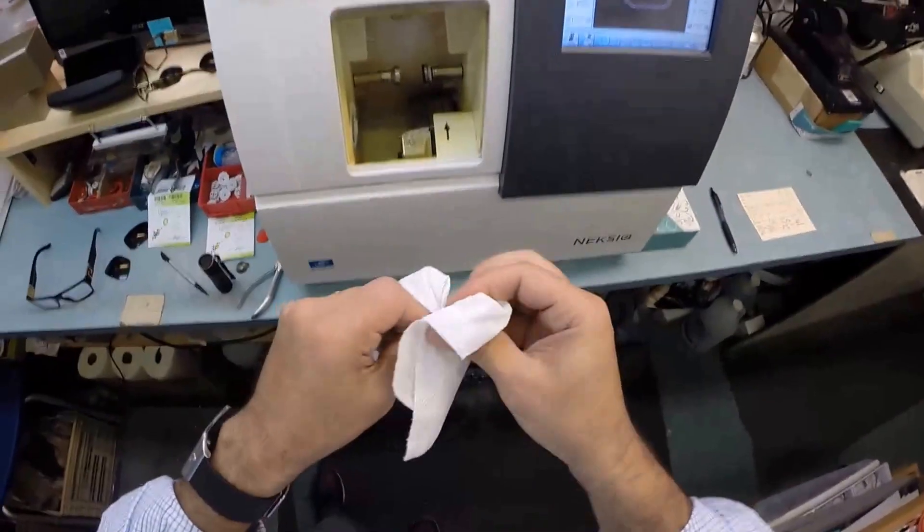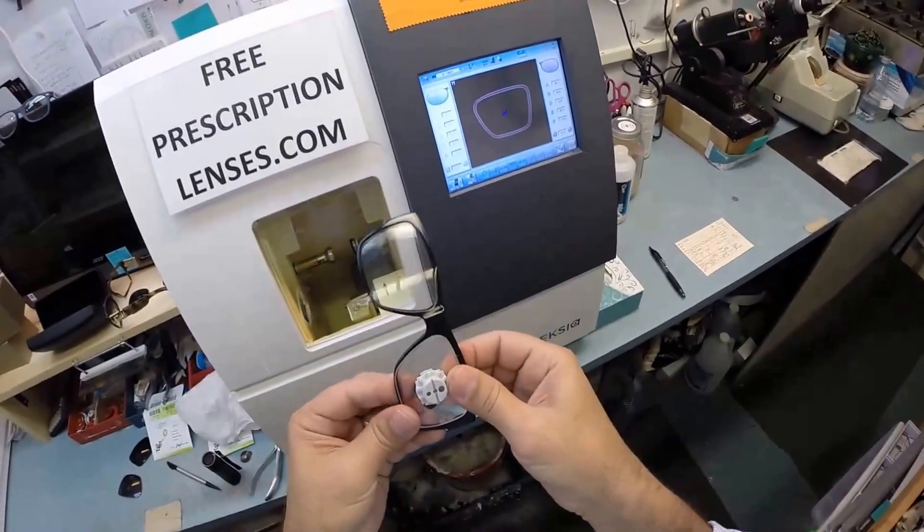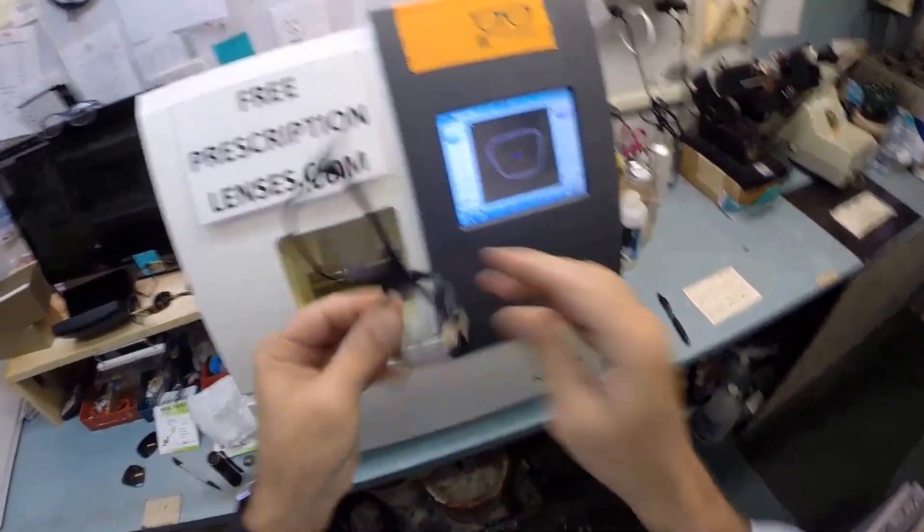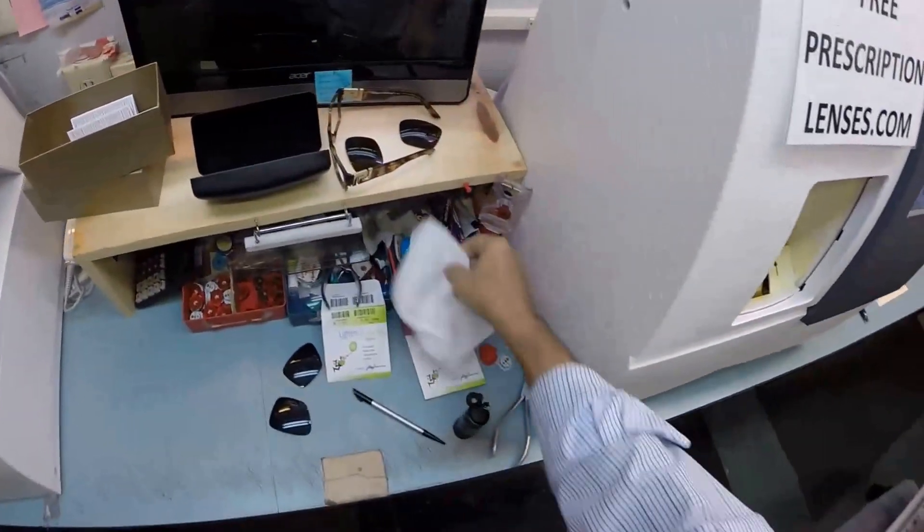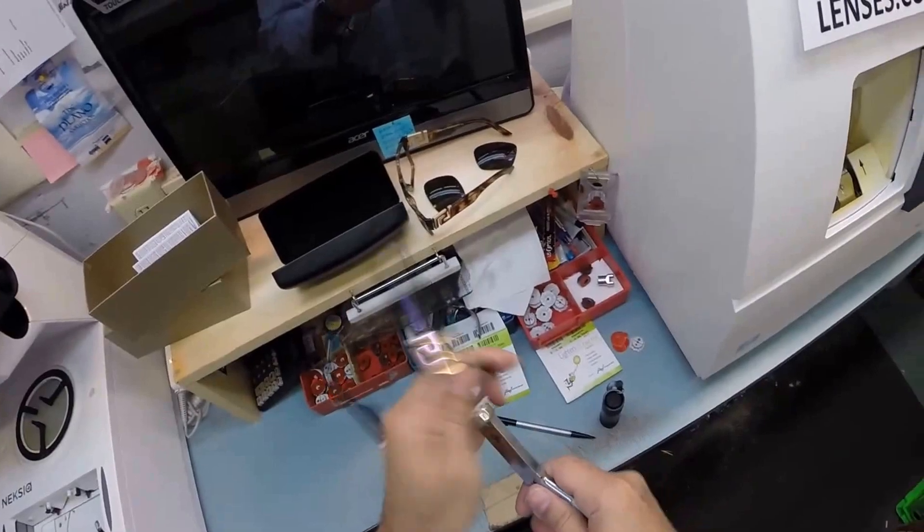Let me open up the chuck—the Charles, the Chucky baby. I'm going to dry your lens off. Let's take the frame. We're going to tuck it in at the outside corner, push down at the nose, and it snaps right in.